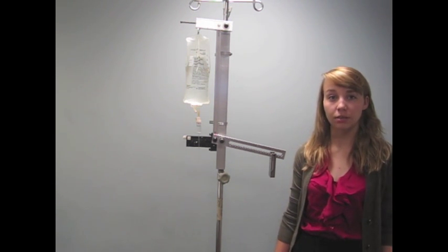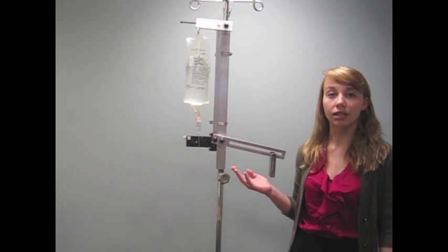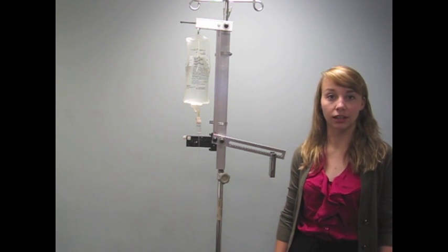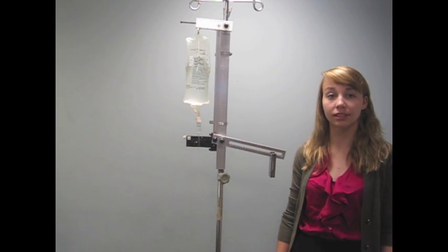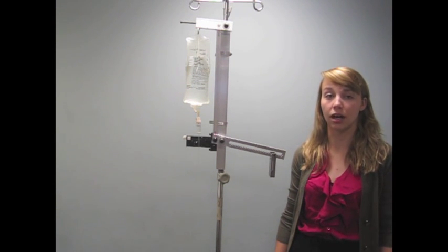In response to this problem, our team has created IV Drip, an entirely mechanical IV volume regulator that will allow clinicians in developing countries to safely and confidently administer IV therapy.